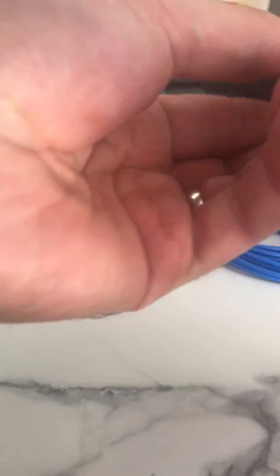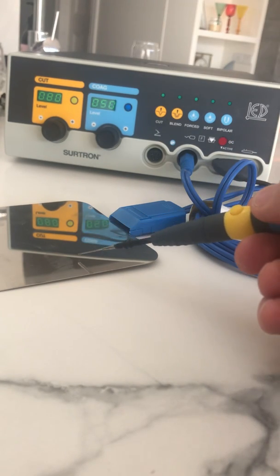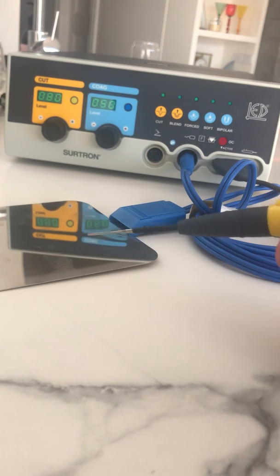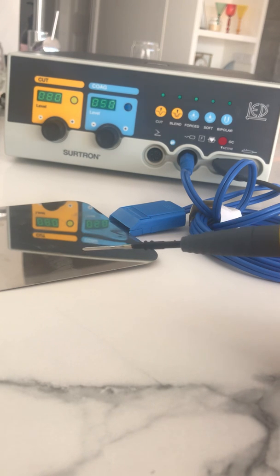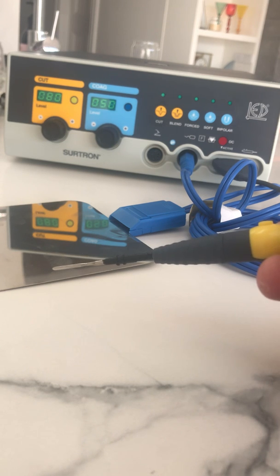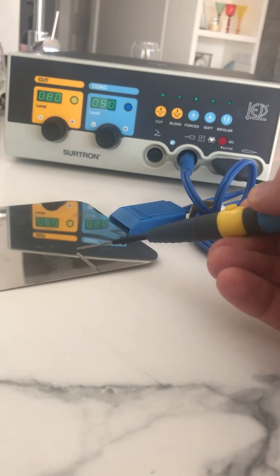As you can see on the plate here, I'm going to trigger the coag and you can hear that's sparking. There's definitely power there — it's sparking on the plate. When using cut or coag, it's important that you don't run the unit for more than 10 seconds at a time. The generator does get quite hot and has a thermal cutout. You want to do just a few seconds at a time — do a little bit at a time: coag, come off, do a bit more.